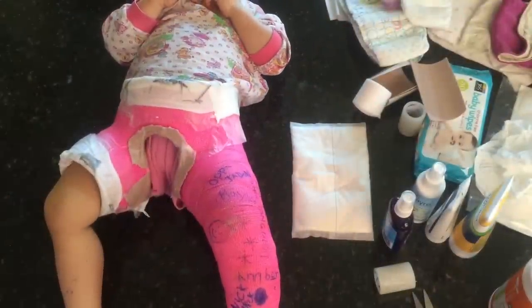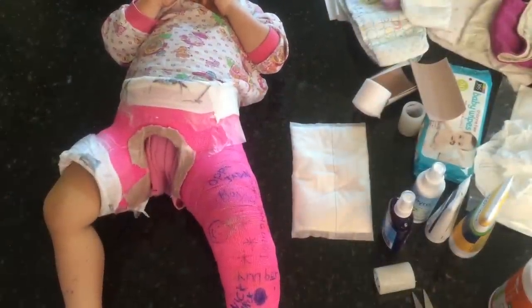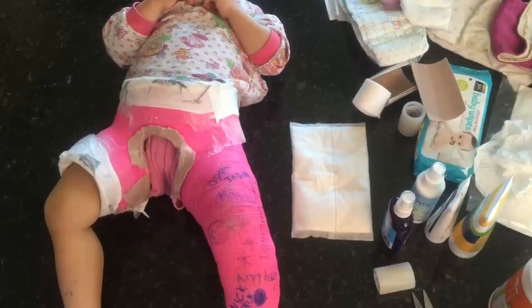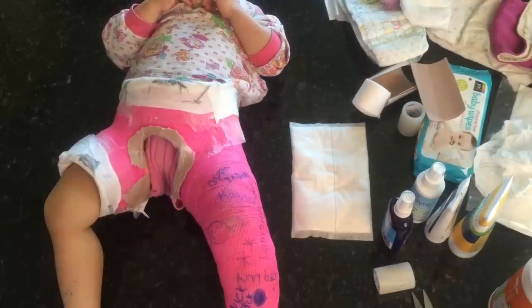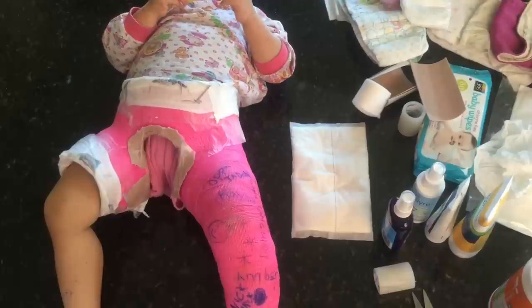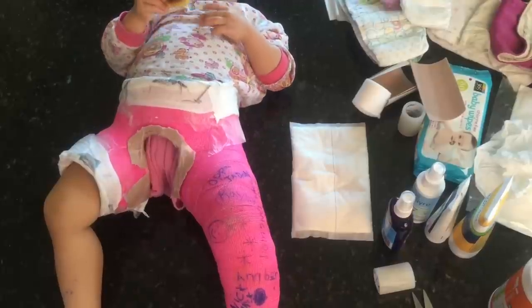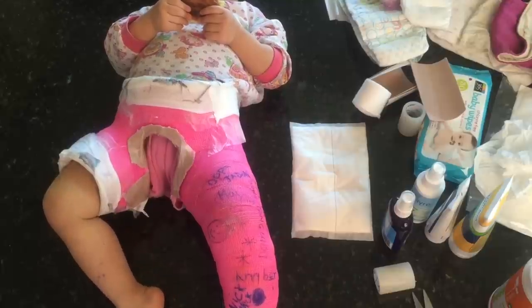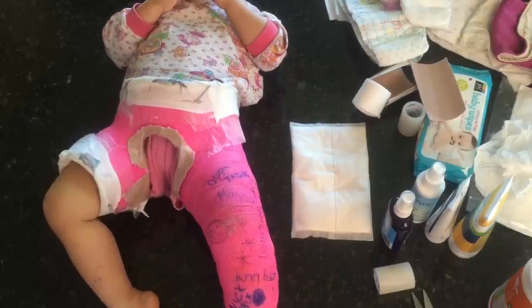As you can see, my little baby is in a body — a hip spica cast. This is her fifth week in it, and I want to show you how I cleaned it. She seriously has no odor at all.